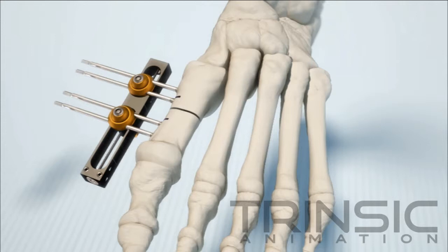There is no loss of purchase if a pin is retracted. Holding the foot with one hand, adjust the position and orientation of the rail axis to be parallel to the direction of distraction or compression as the case may be. The rail should be positioned about 15 millimeters away from the foot to allow for possible swelling following surgery.